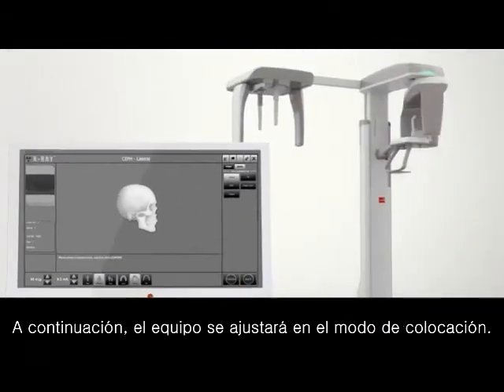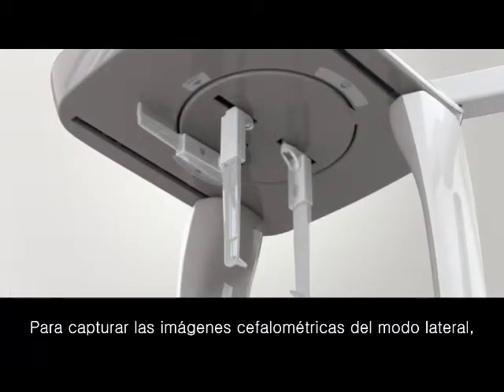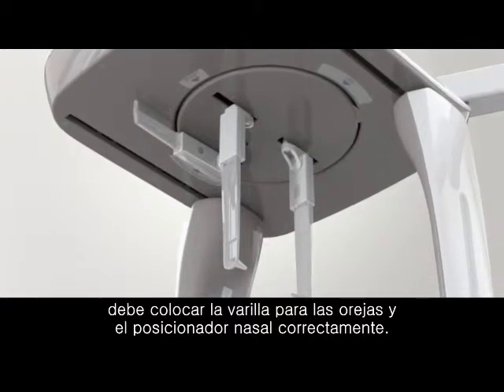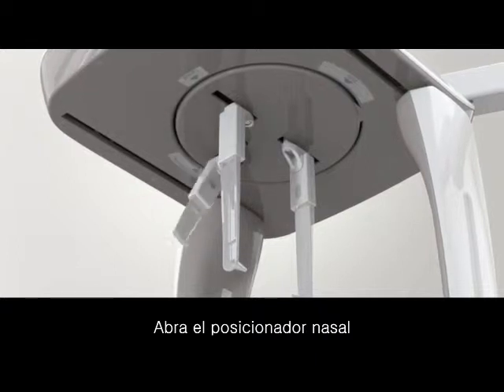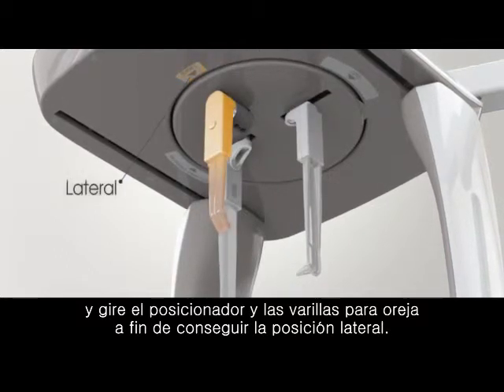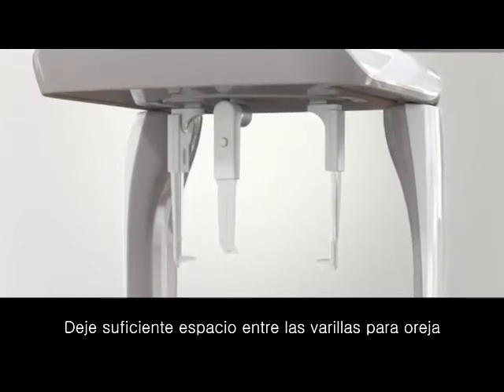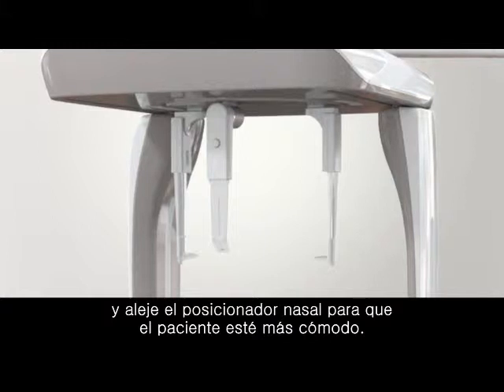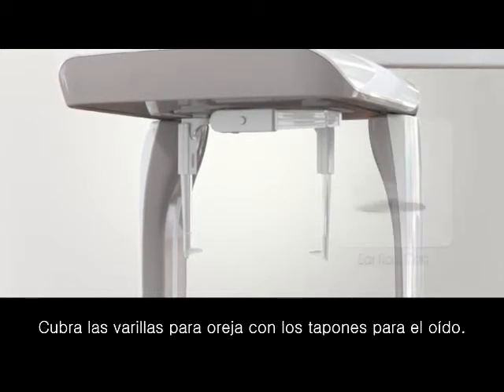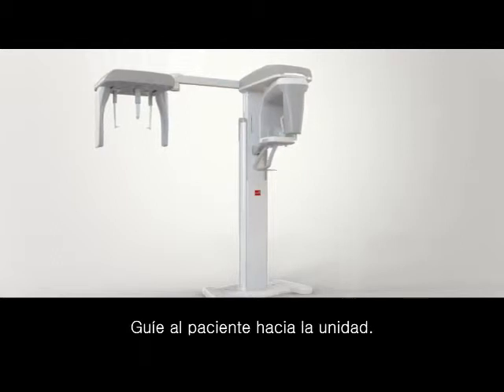The equipment will set in positioning mode. To take the ceph images in lateral mode, you have to locate the ear rod and nasal positioner in the proper position. Unfold the nasal positioner down and turn the ear rod to the lateral position. Leave enough space between the ear rods and move the nasal positioner out for the patient's convenience. Fold the nasal positioner up and cover a cap over the ear rod for patient safety.